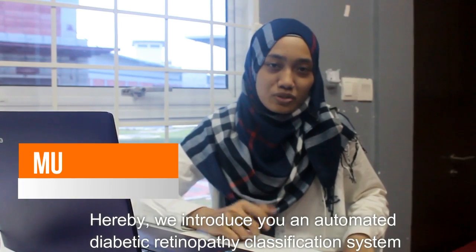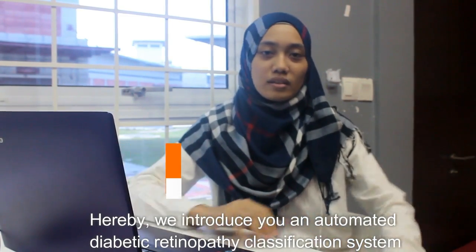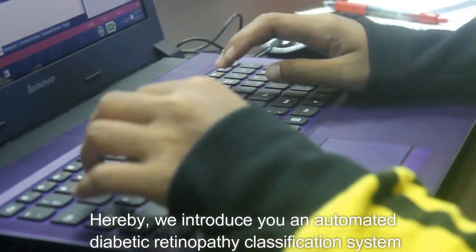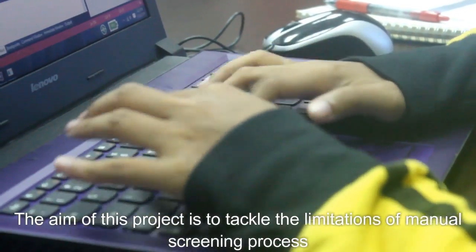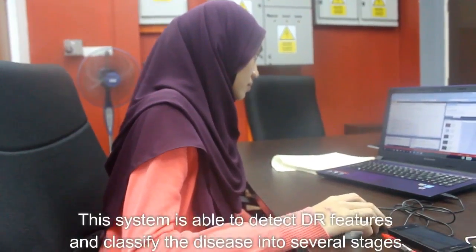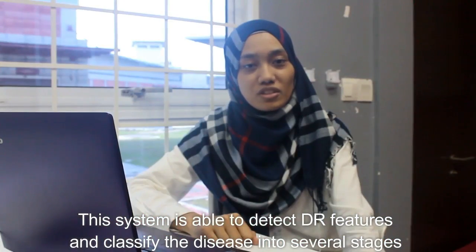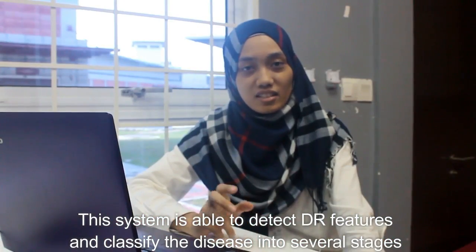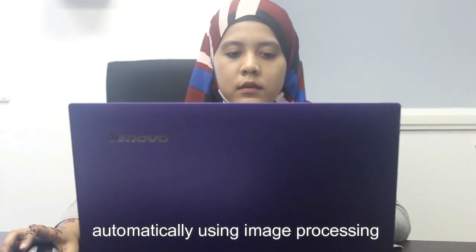Here, we introduce an automated diabetic retinopathy classification system. The aim of this project is to tackle the limitations of the manual screening process. The system is able to detect diabetic retinopathy features and classify the disease into several stages automatically using image processing.